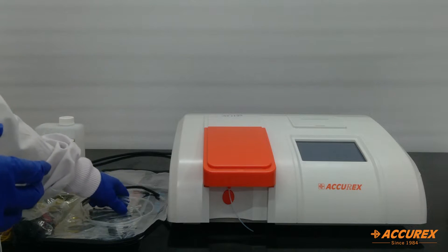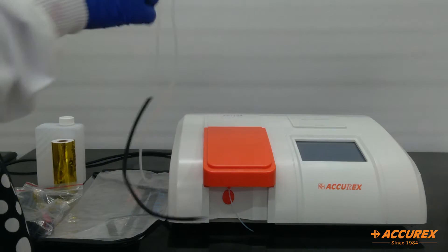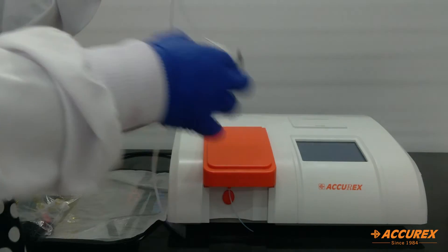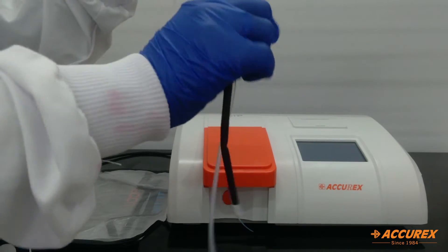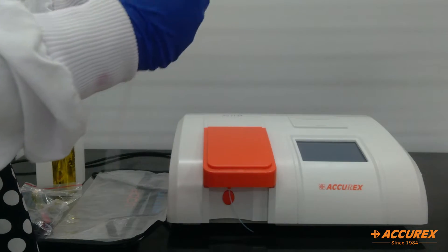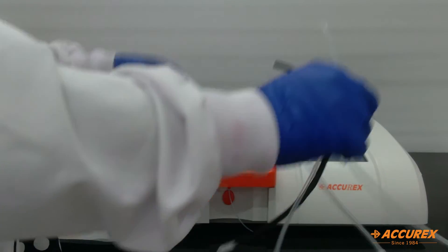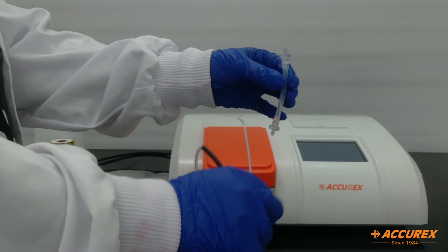Here we have four different tubes. This one is the discharge tube, the drain tube, the aspiration tube, and the peristaltic tube.